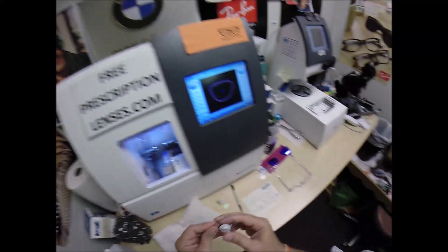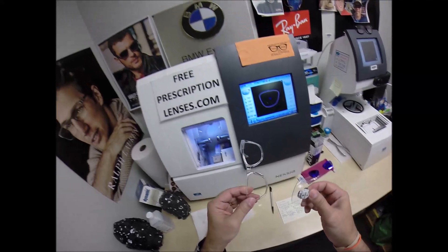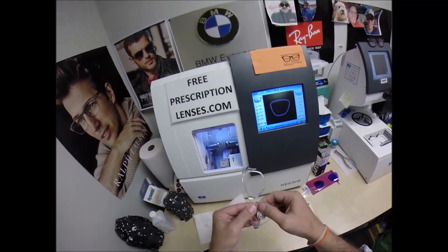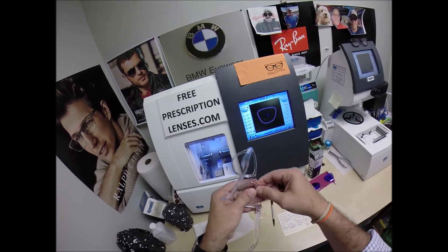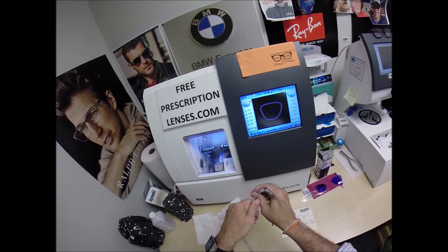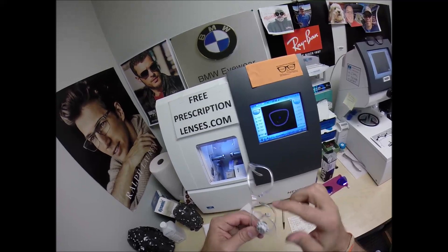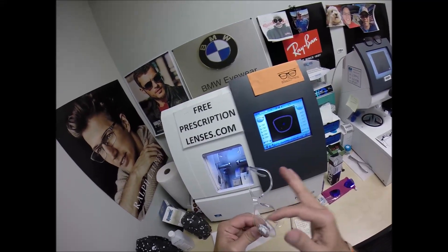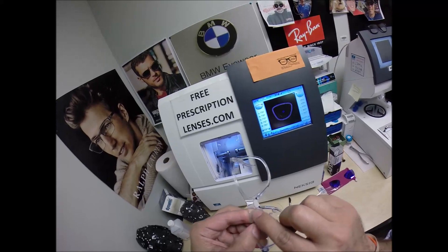I'm going to make sure that all the optical debris is off the edge of the lens. The reason why I put the safety bevel on the back surface of the lens — as I mount your lens into the frame, Christian, should you ever need new lenses for this frame — I have the side I'm working on closest to me. I tuck it in at the outside corner first, use my thumbs, press down at the nose, and it snaps in easily. But just in case this were too large — to take it out, I tell everyone, thumb your nose to the idea with your thumb at the nose. Put your other thumb on top, grab the lens so it doesn't fall out, press out with your thumb, press downward, and it will pop right out. The reason I put the safety bevel is so that if the lens is too large and I press down at the edge, I don't want to mar any tiny half-millimeter going around the edge of your lenses.